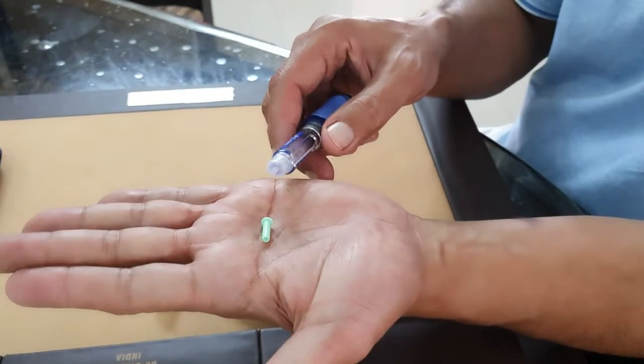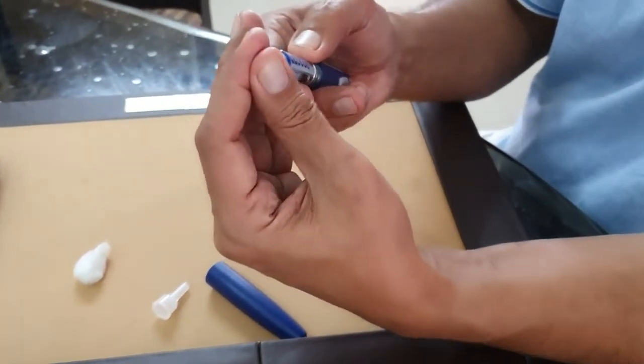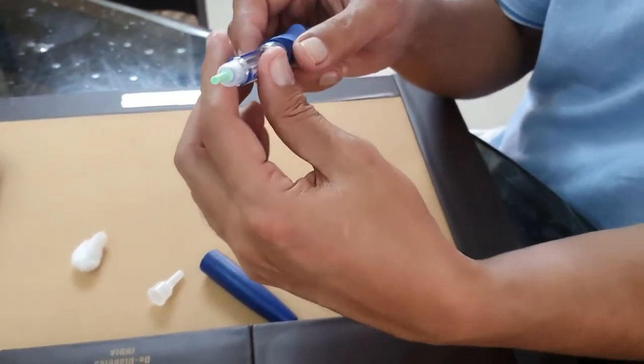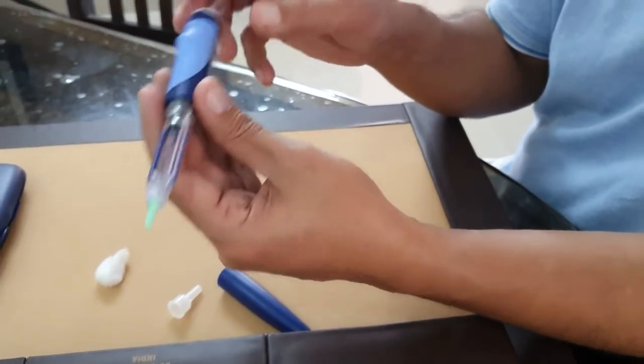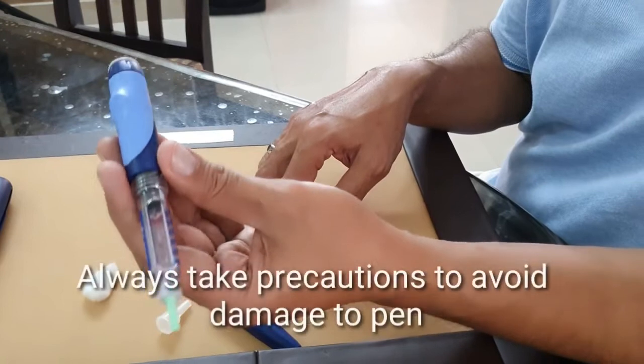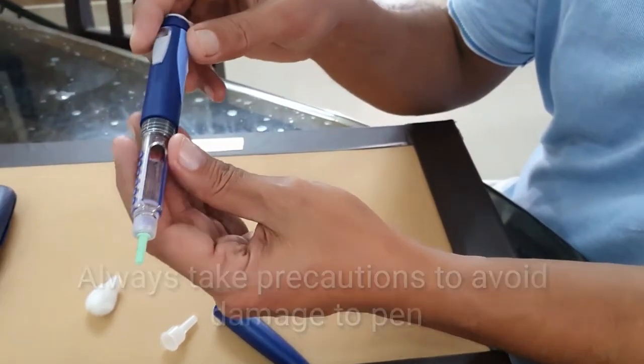After that you're going to put the needle back. Always keep the cap like this and put it like that, so you don't lose the sharpness of the needle. Put it back tightly and always make sure you handle it properly.